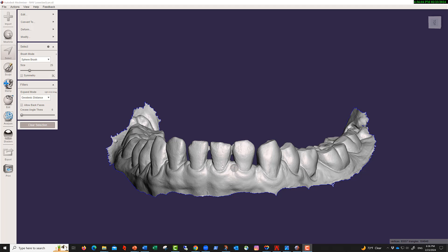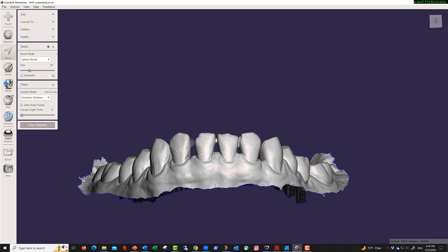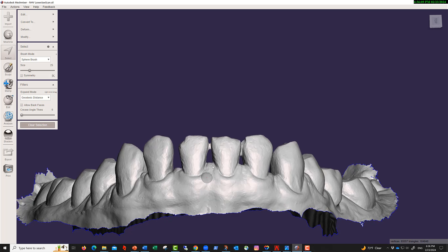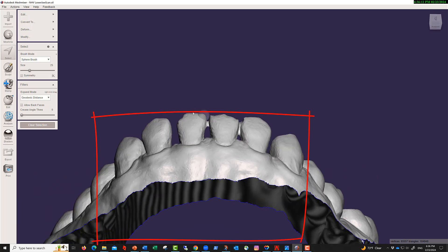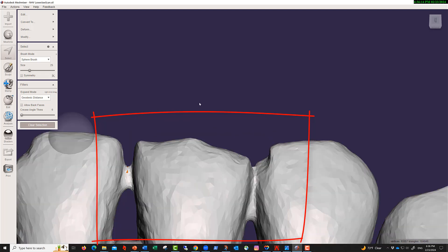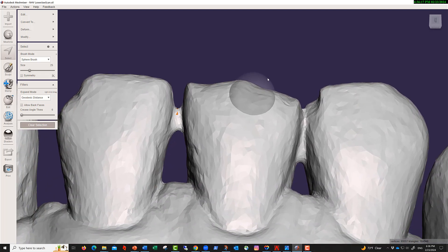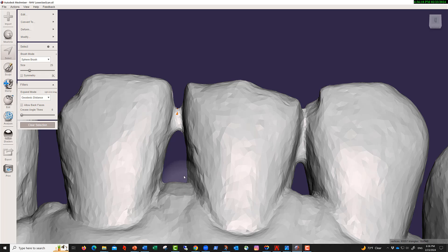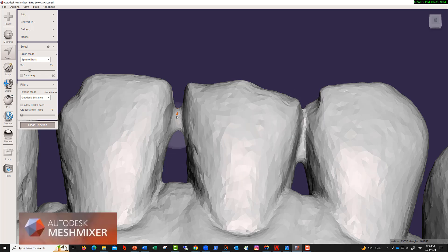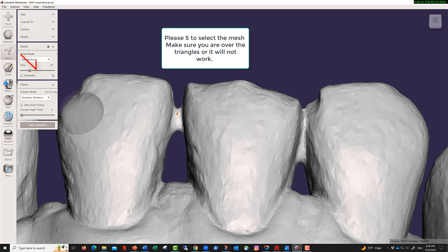I have this model right here that was scanned with diastemas, and you can see that there are unions that you don't want to have before you segment the teeth, because this would be difficult for our software sometimes to separate these. So the best thing to do is to, in Meshmixer again, correct these. And again we press select.